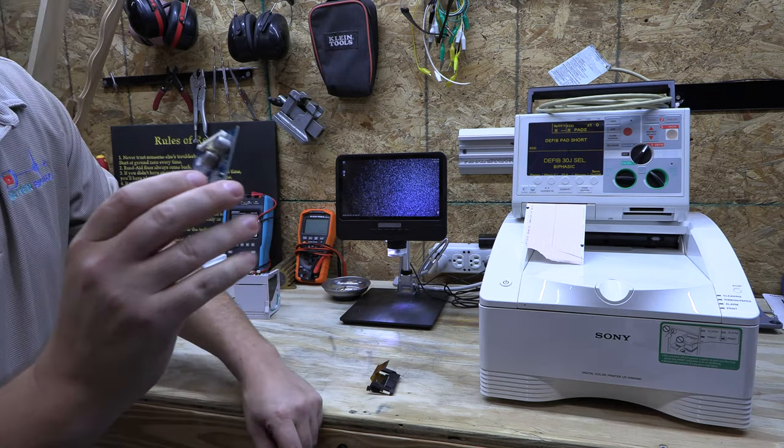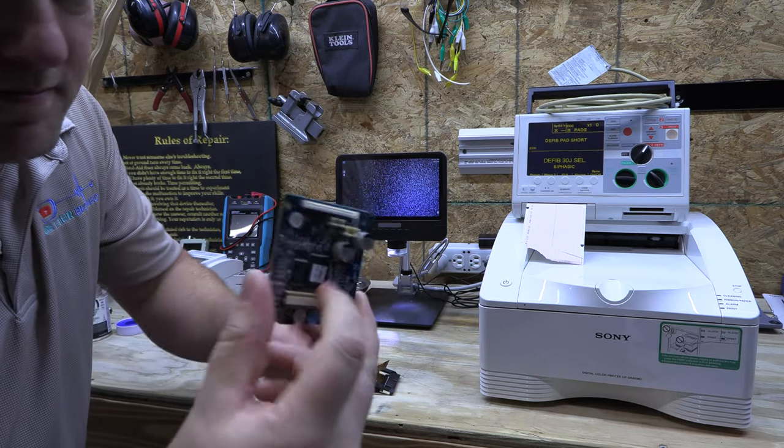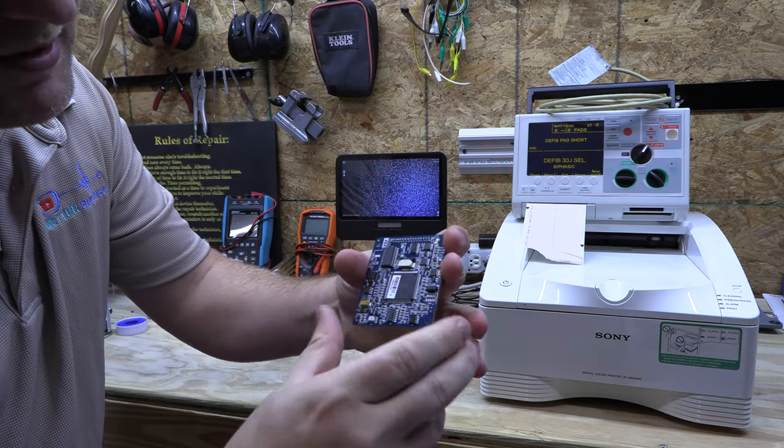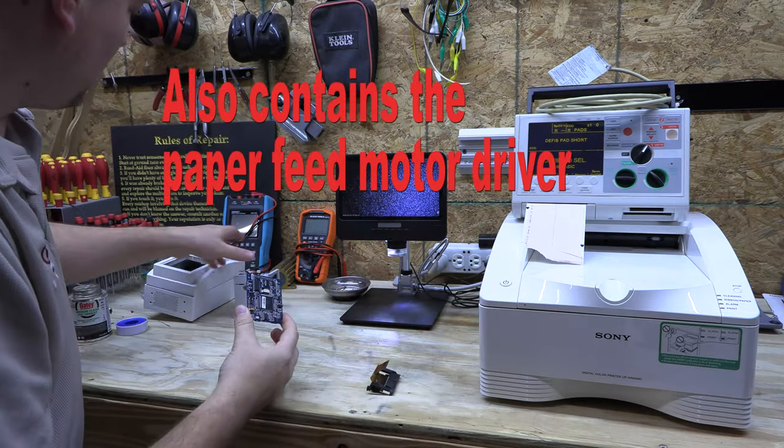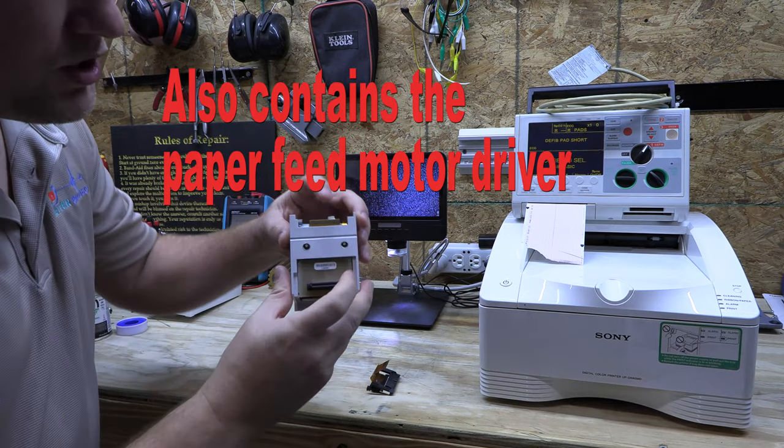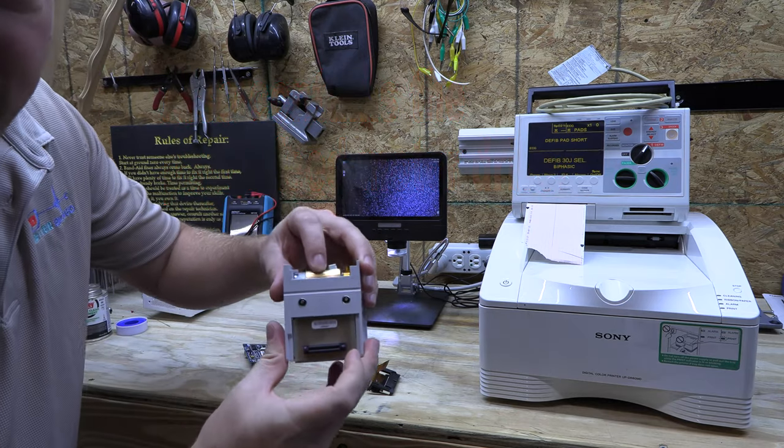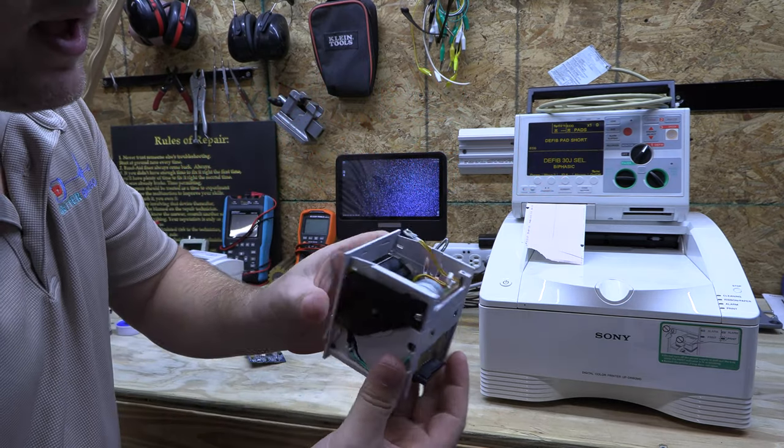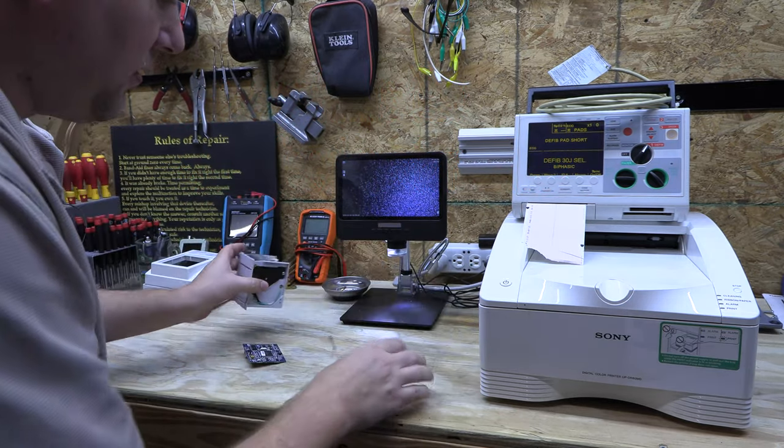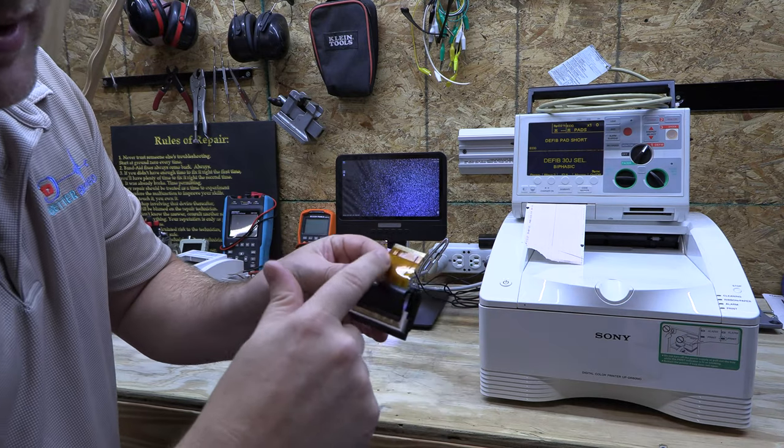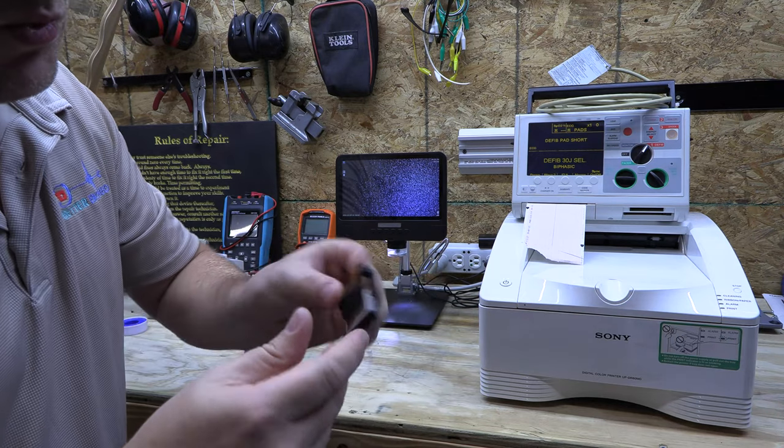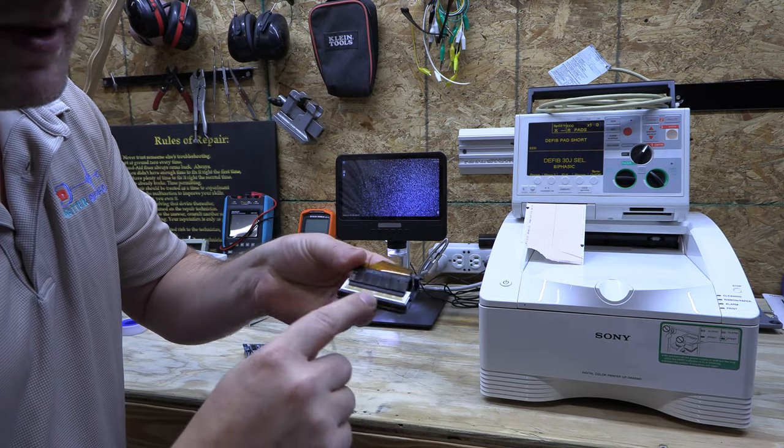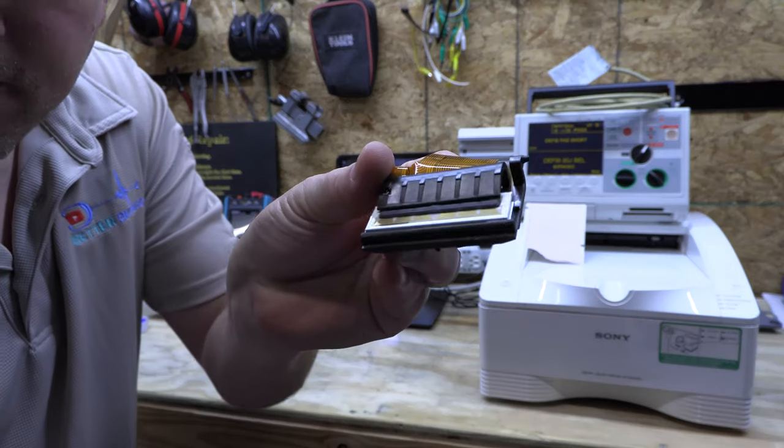This is the controller card that sits on top. It's got your main CPU. There's two ribbon cables that come in. One of your ribbon cables in the back is your communications cable. And the second cable, you can see all the pins on it. Each one of those pins relates to one of the segments on your printhead.